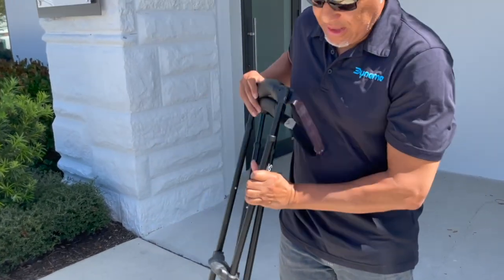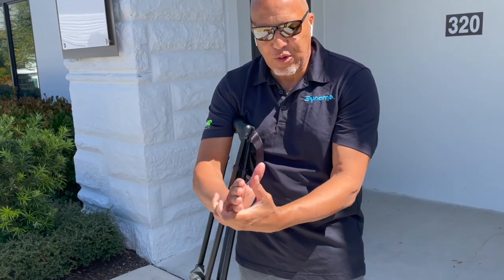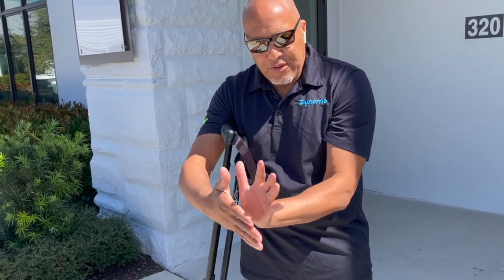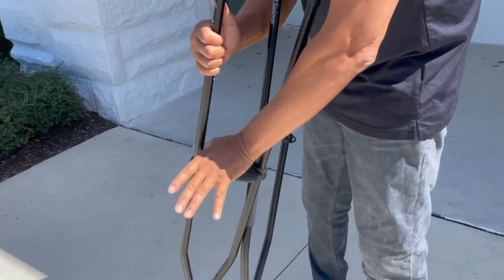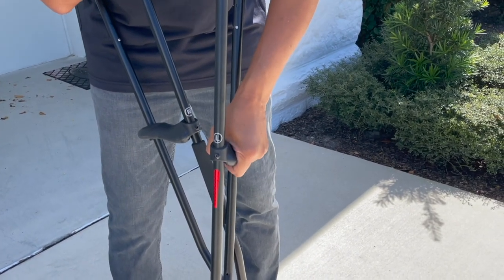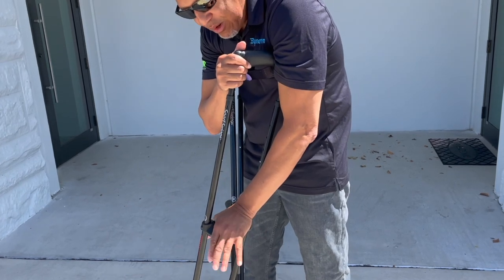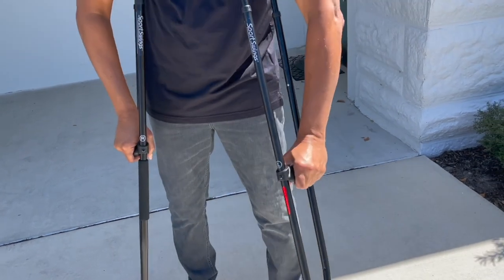The rationale for the flat grip is this: when you're pulling something, humans are designed to use their fingers — you wrap your fingers around it. But if we're pushing something, we want to align it with the ulna and the radius by placing our entire palm. This grip is designed exactly like that — a pushing grip designed how humans work to push down. Holding it with your fingertips while pushing is not optimal and can cause damage, arthritis, wrist pain, and finger pain. With our grips, the fingers aren't necessary. All you're doing is pushing — you lightly put your fingers around it, and all the pressure goes through your ulna, your radius, and the palm, which is what we want.